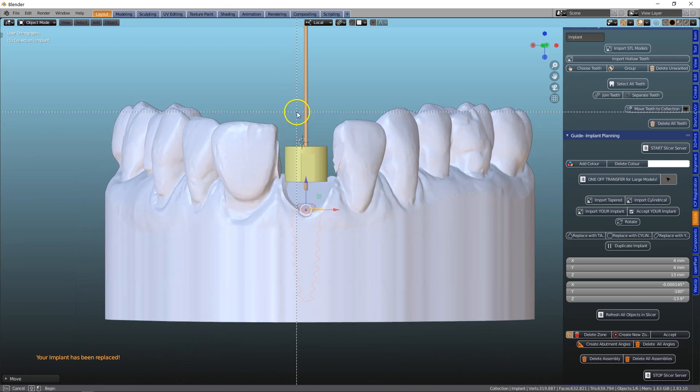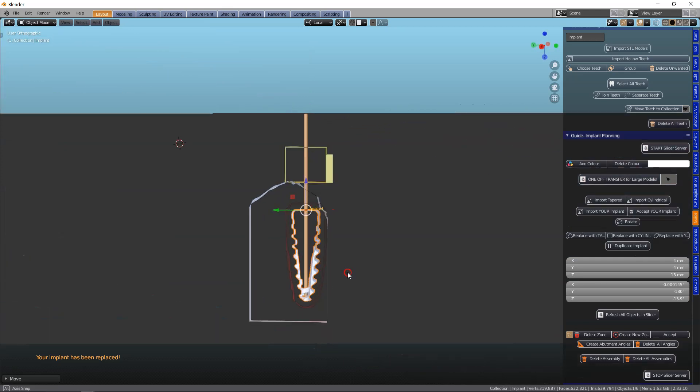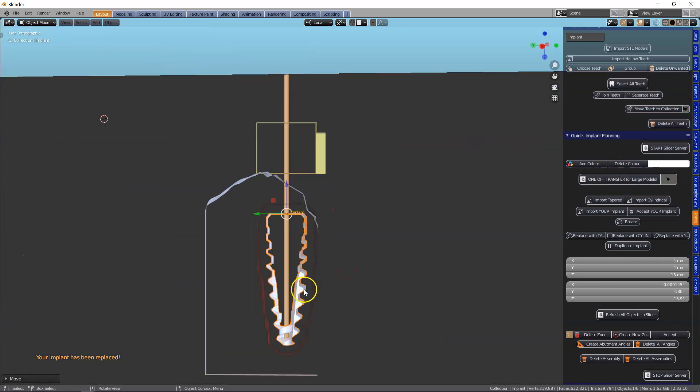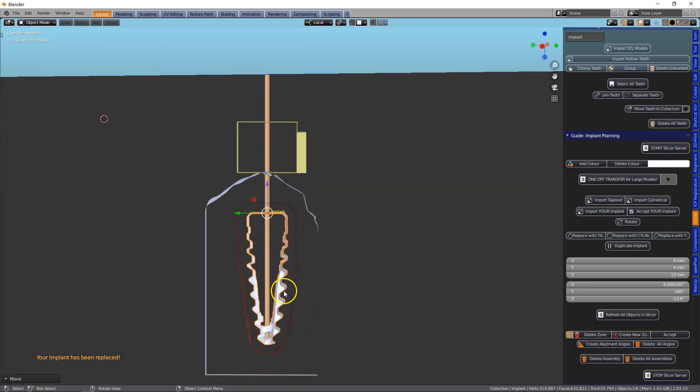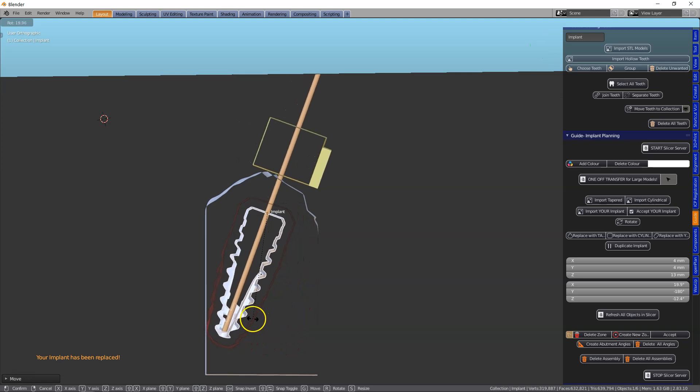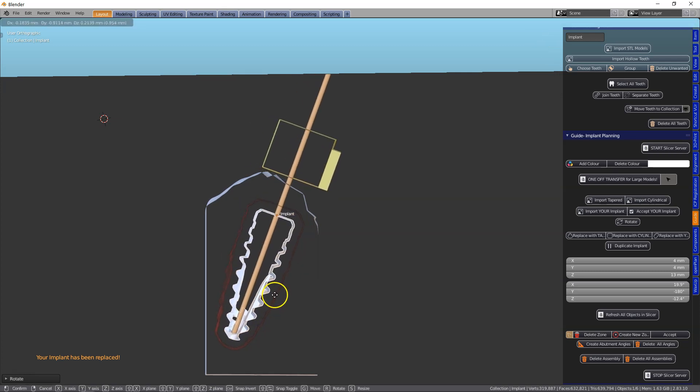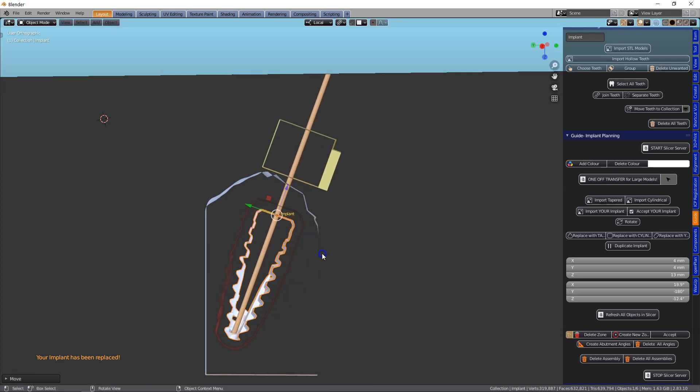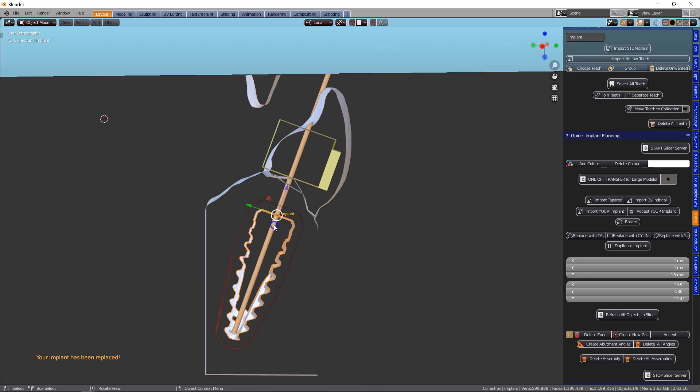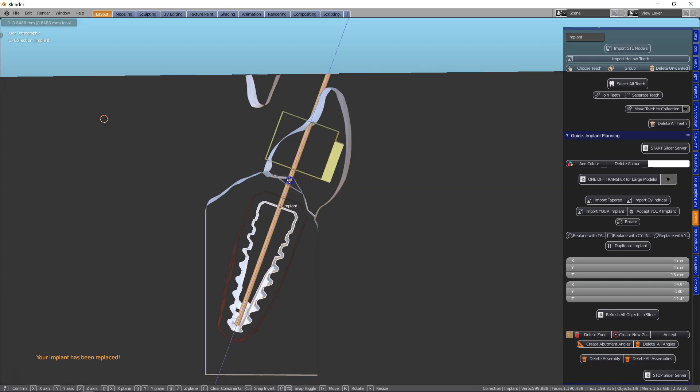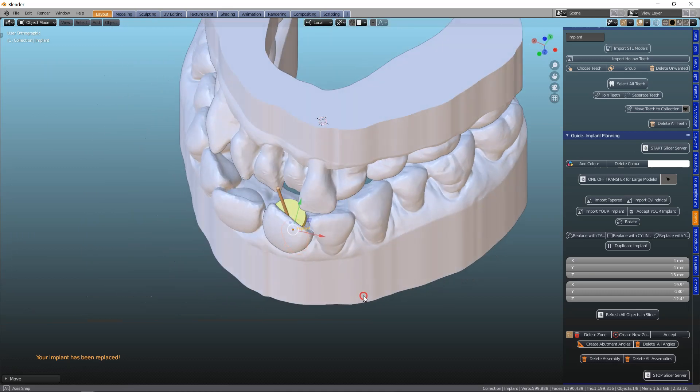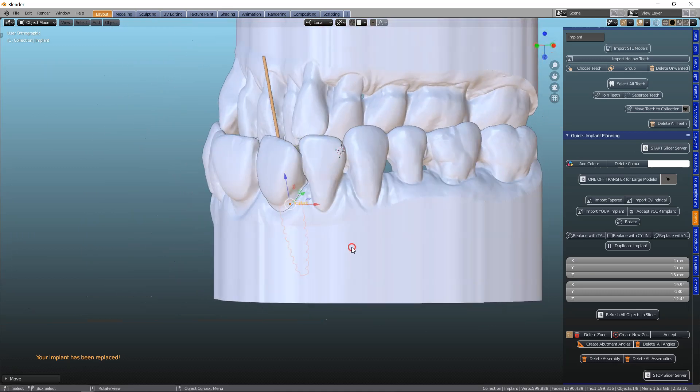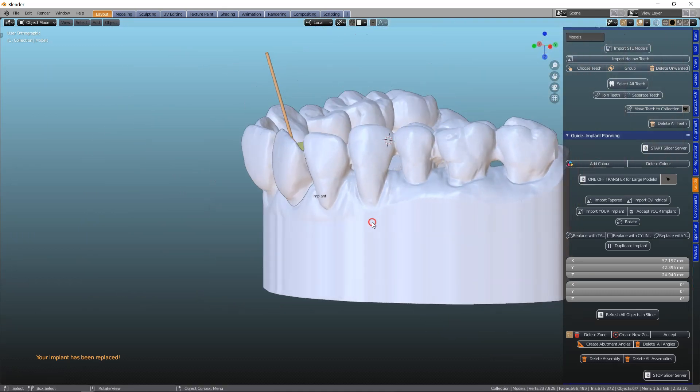And sink it down in cross section. Of course we'd use the DICOM, but for this example we'll leave that out. Let's unhide everything and see where this is. Okay, we're going to leave it there, and then we can join the two up.